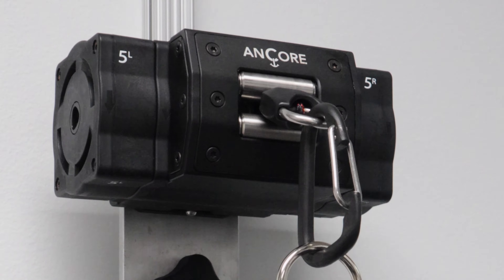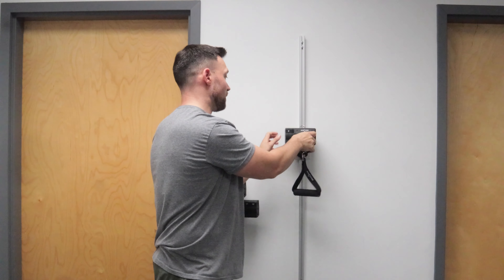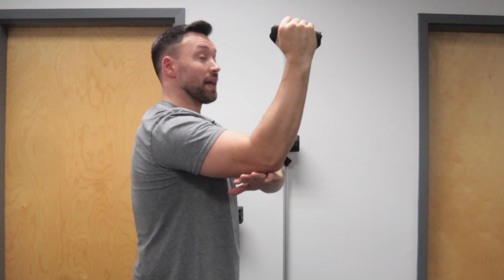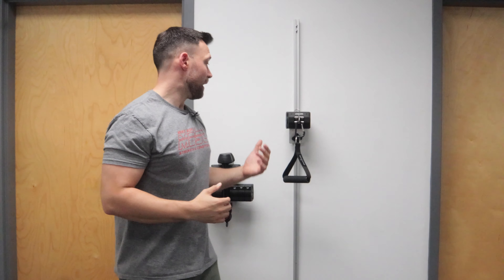The new model here is super smooth — there's no changes in resistance. It's smooth, so if you're doing things like rotator cuff work, it's nice and smooth through the whole range. Even for a beginner, you could start without resistance. It's a big part of our treatment on everything from core exercise, shoulder rehab, hip rehab, and power work.